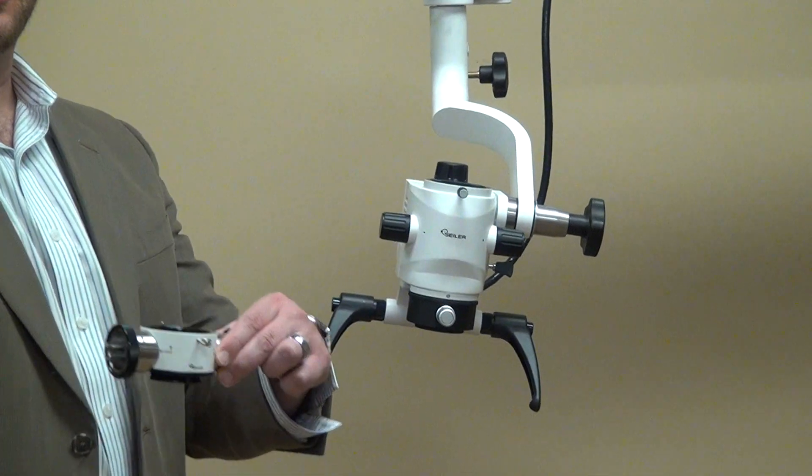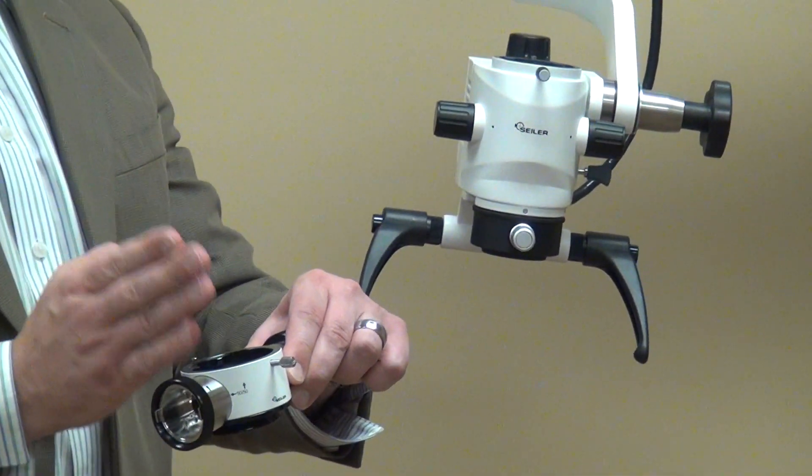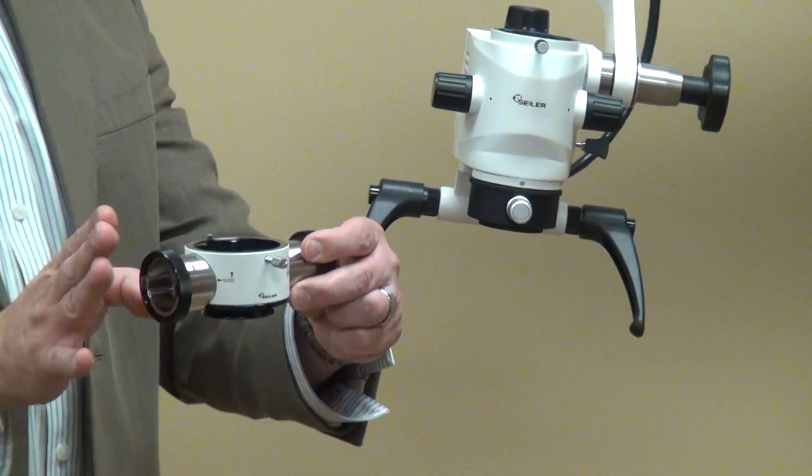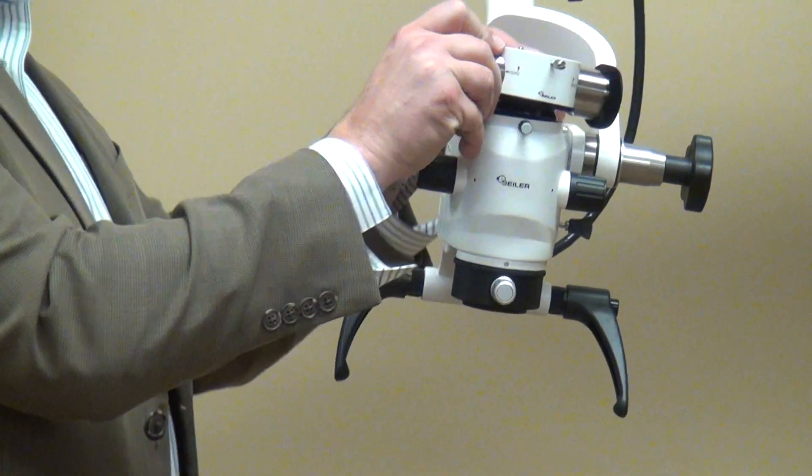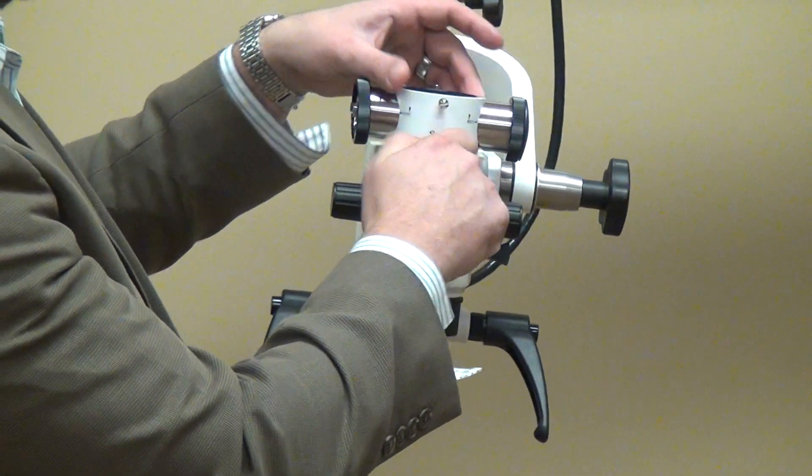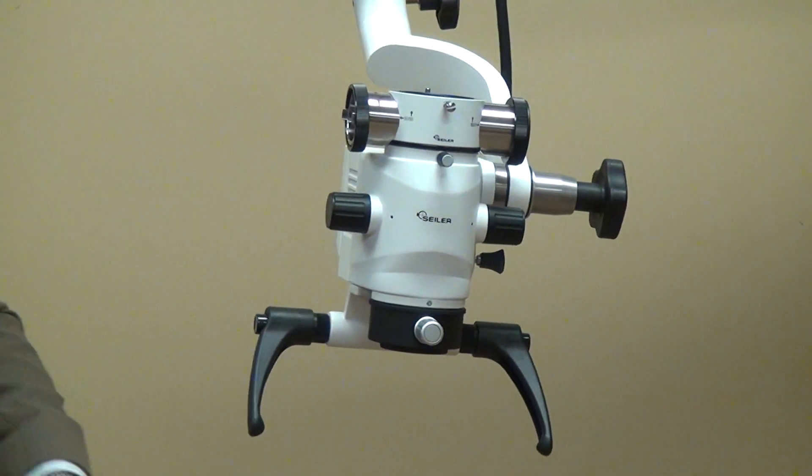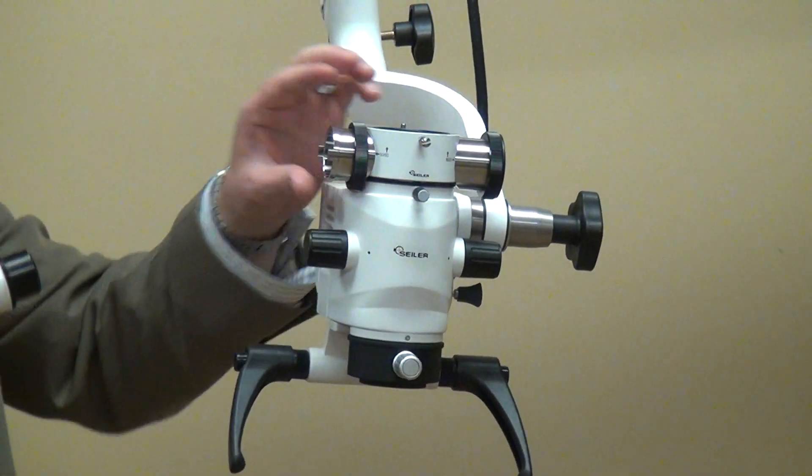100% of the light's coming through, 100% is coming back. 50% out of the right light path is going to come out this port. So what that will do is give you more light to be able to see whatever the doctors are looking at.